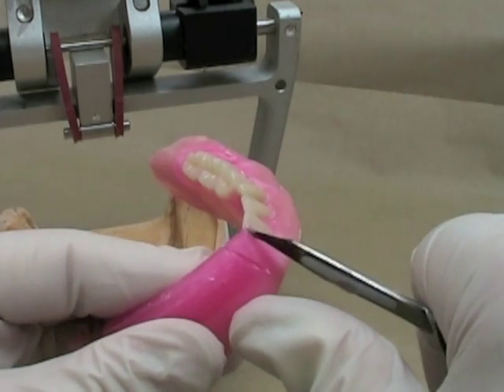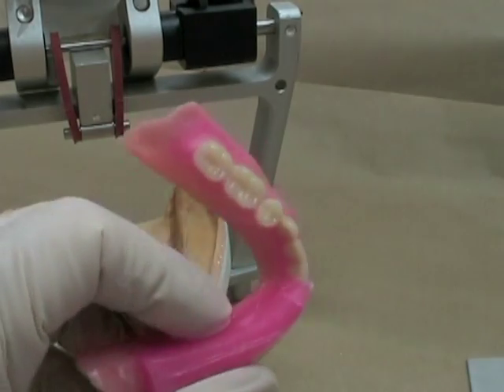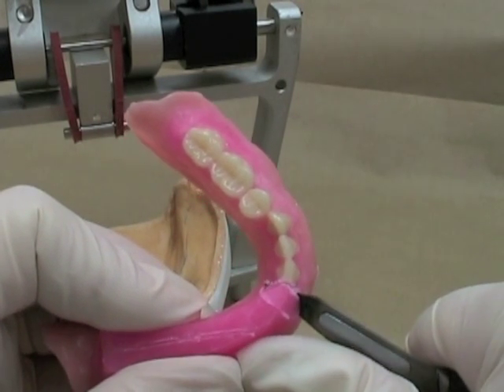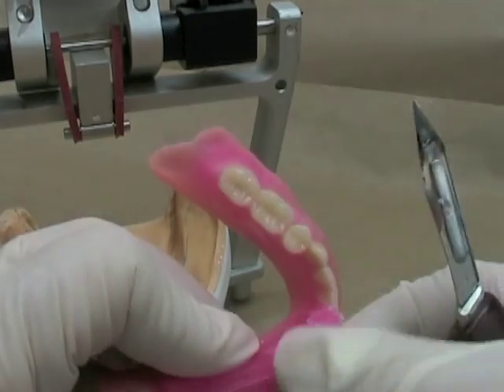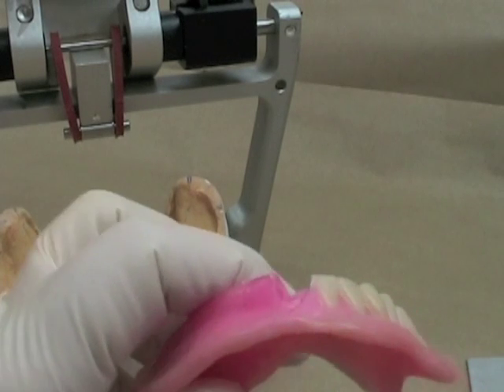Removing the wax is very similar to the maxillary arch. You can use a finger rest. Set one tooth at a time so you can use the rest of the arch and the wax occlusion rim to tell you exactly where the position of that tooth should be.